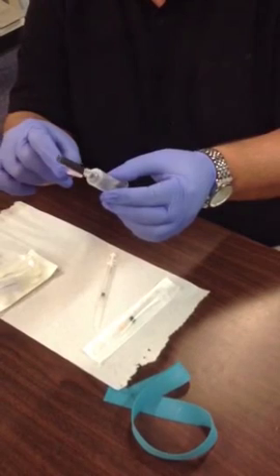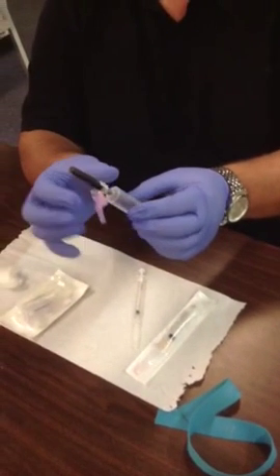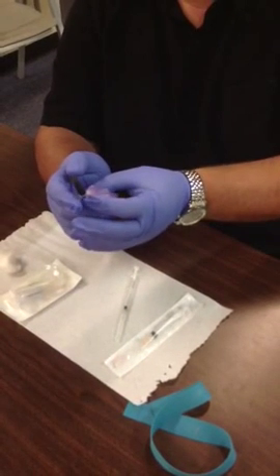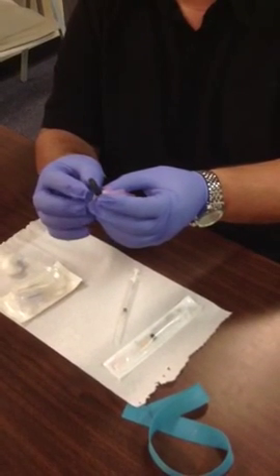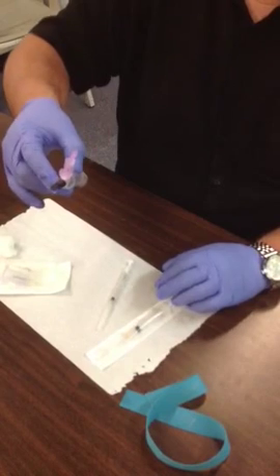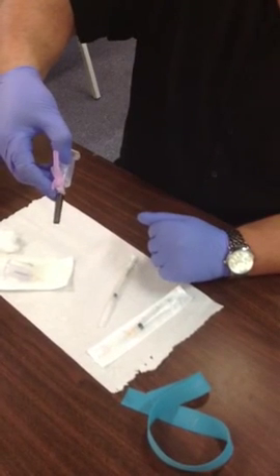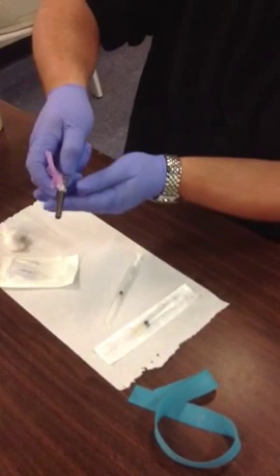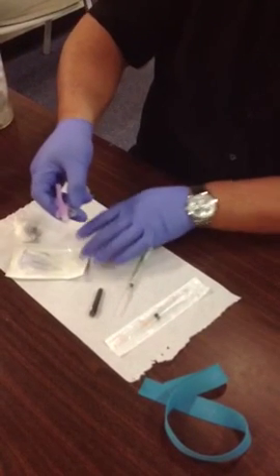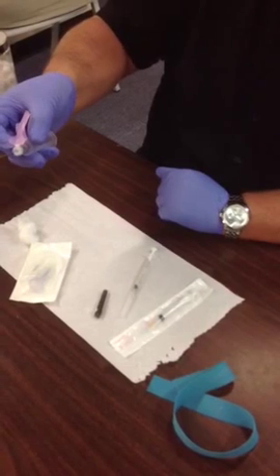While it's covered, pull this safety device back so you're not pulling the device back close to the needle, which is underneath the cap at this point. When you need to expose the needle, take two fingers and just loosen it — it's already fairly loose. When you're ready to use it, lift your adapter about 10 inches above the table and use your finger to encourage the cap to slide off. We do it this way so the needle doesn't accidentally touch the table or any other supplies and contaminate the needle before we put it in the patient's arm.